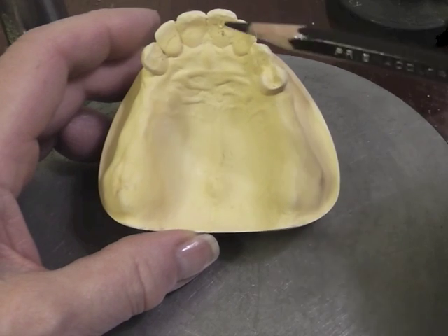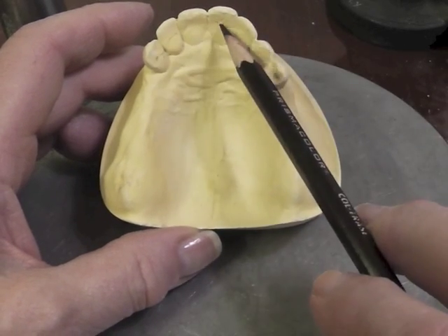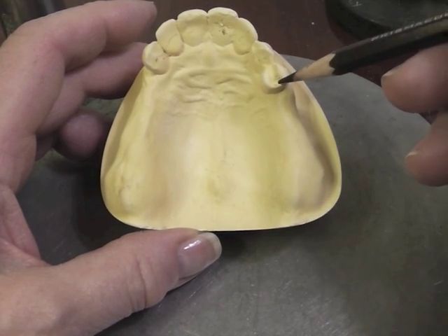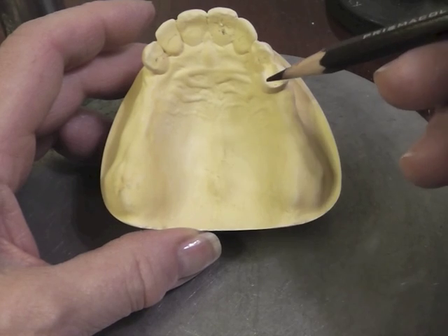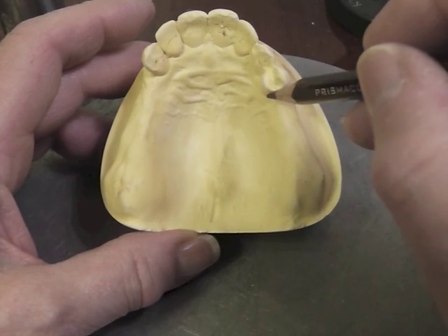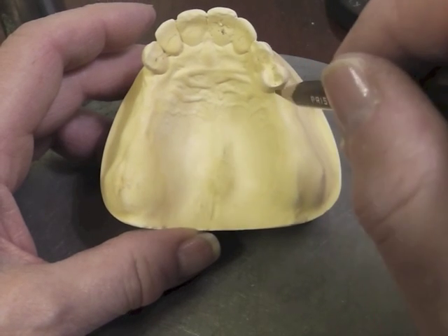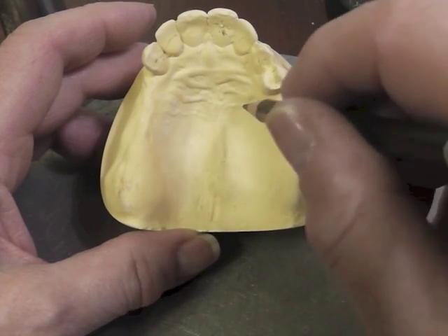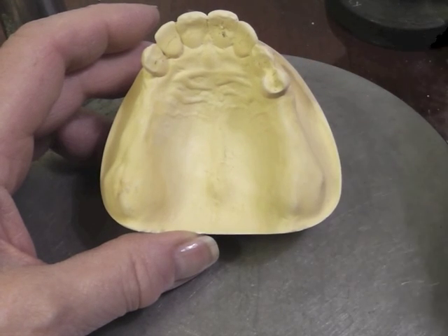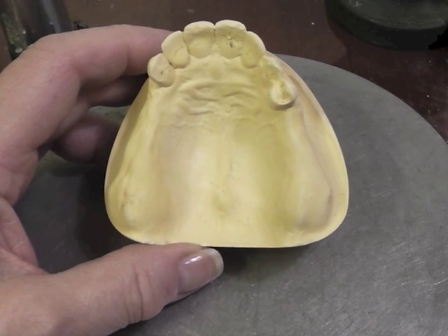For rests, we're going to have a cingulum rest for our indirect retainer on the canine. On the premolar, it will depend on the clasp: if we do a wrought wire clasp, we'd have a distal rest and plating. If we do an I-bar, we will have a mesial rest, distal guide plate, dip on the lingual, and put an I-bar on the facial. Let's see what we have on the surveyor.